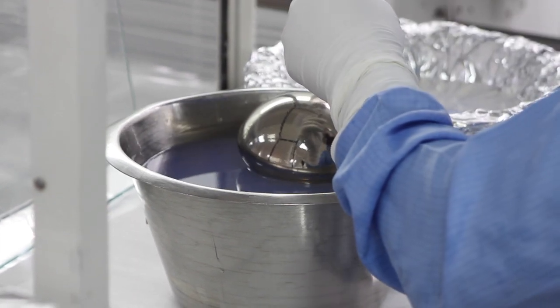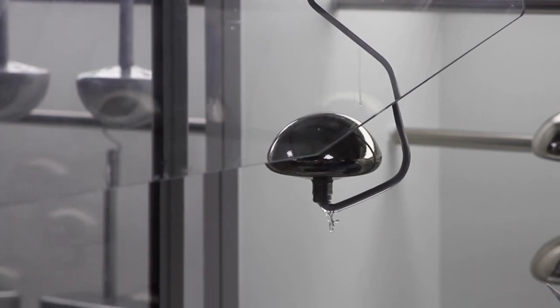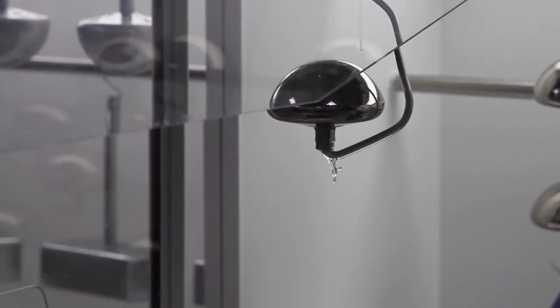I would say the most valuable area is called the dipping. It takes around three to four months to train dippers. It is very technical.